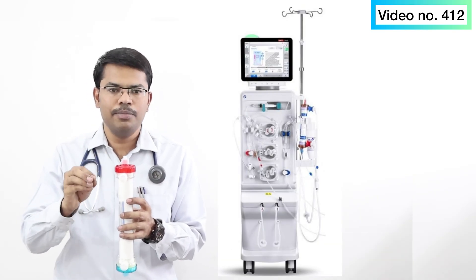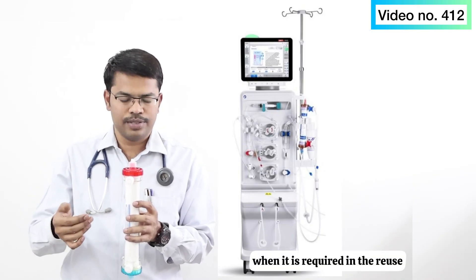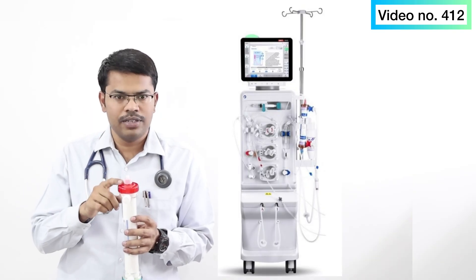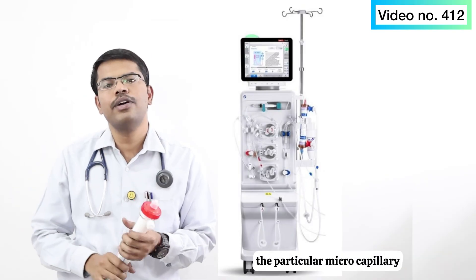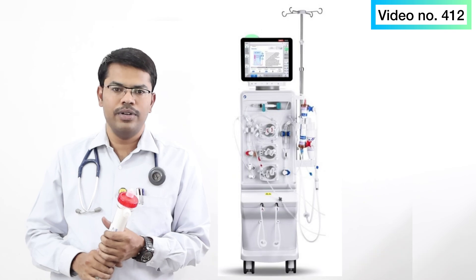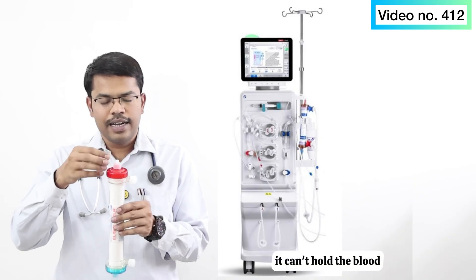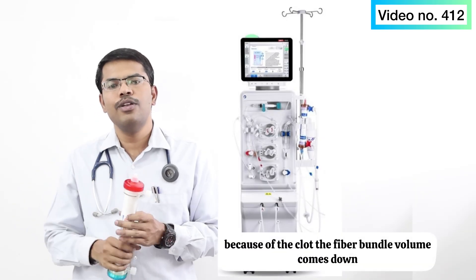In a fresh dialyzer, the fiber bundle volume will be 100%. During reuse, many micro capillaries may get blocked due to blood clots or other damage. Blood cannot pass through those capillaries, so the active diffusion area is reduced and the fiber bundle volume comes down.